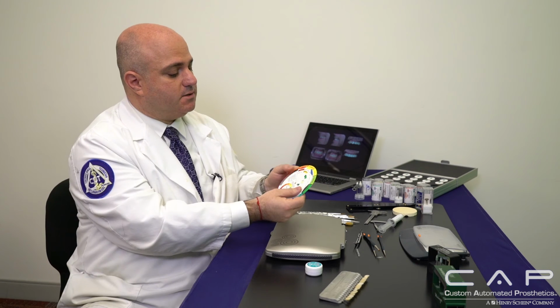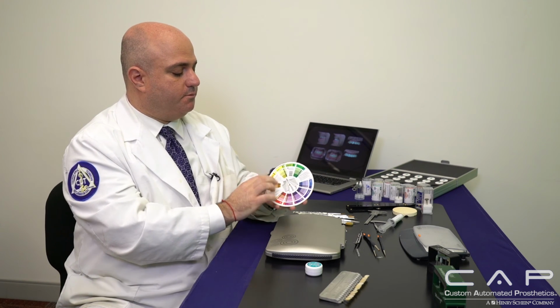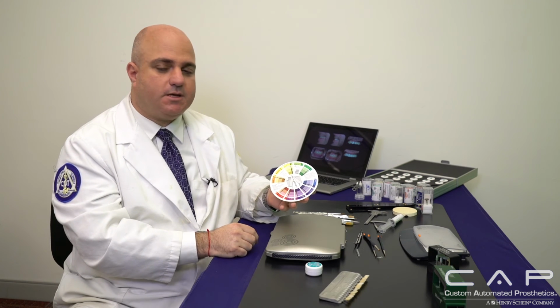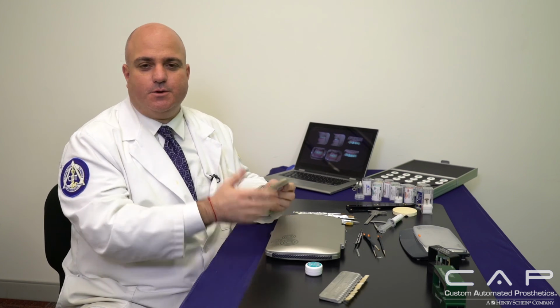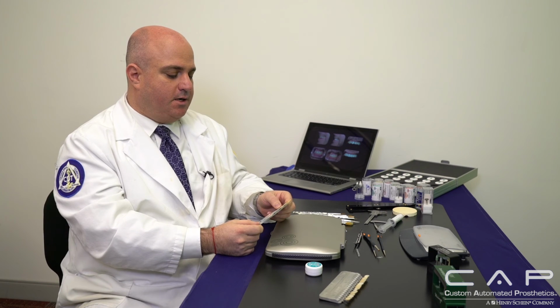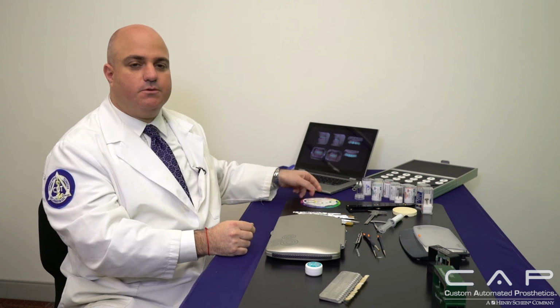On this side it has the chroma and the primary and secondary. On the back side, it has how to control some of the values within. Sometimes we get a little stumped. We want to achieve a shade, whether it's an A2.5 that the doctor provided us, so we want to see which stains will get you the best outcome. And with that, these are the things that are on my bench.